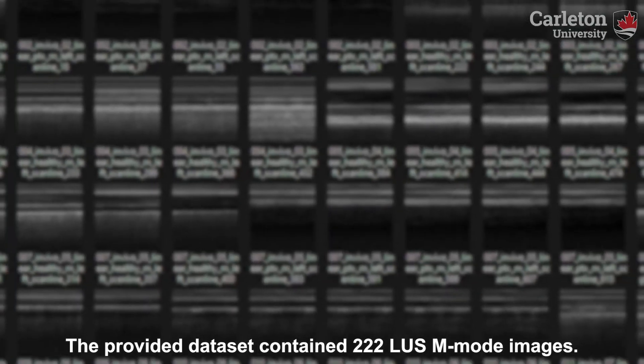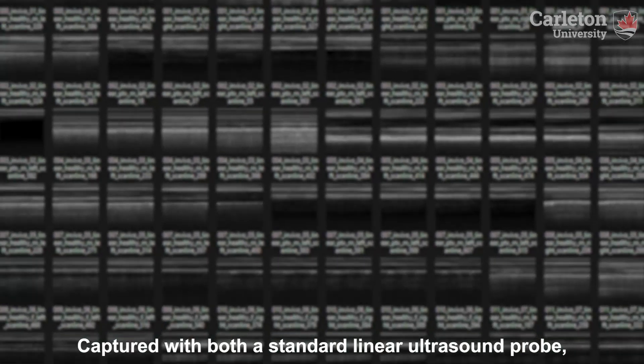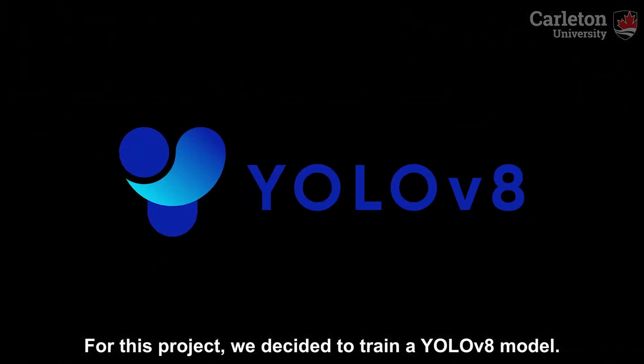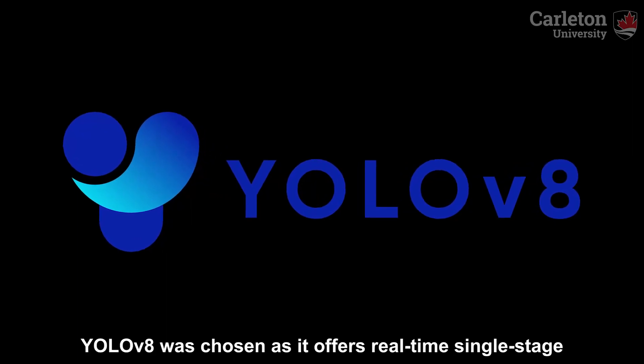The provided dataset contained 222 lung ultrasound M-mode images, captured with both a standard linear ultrasound probe and a wearable ultrasound probe. For this project, we decided to train a YOLOv8 model.